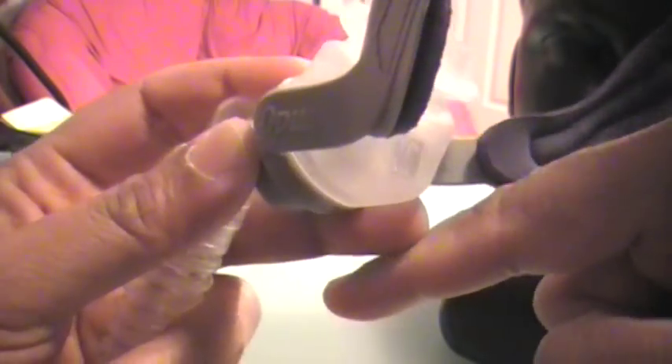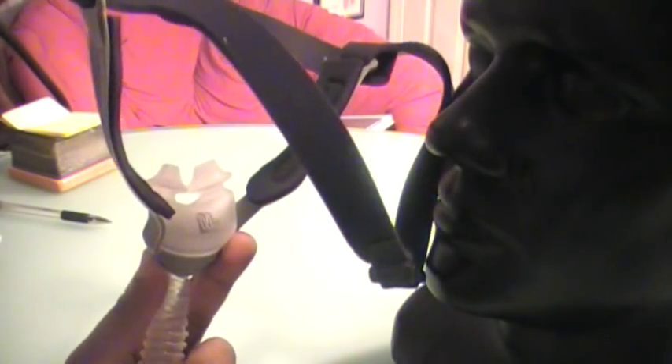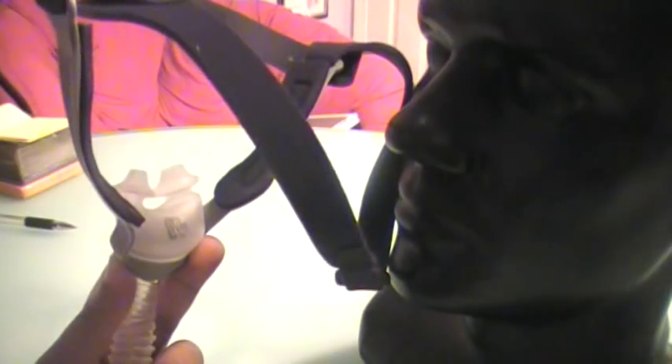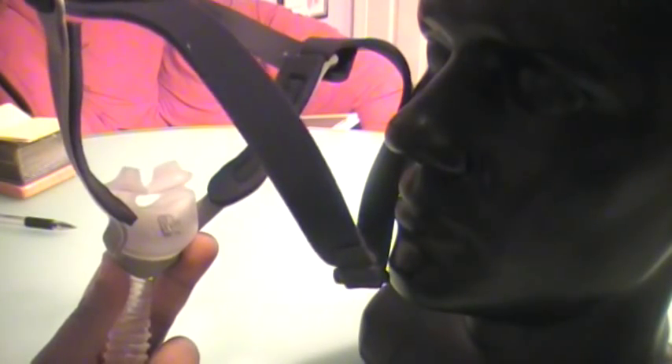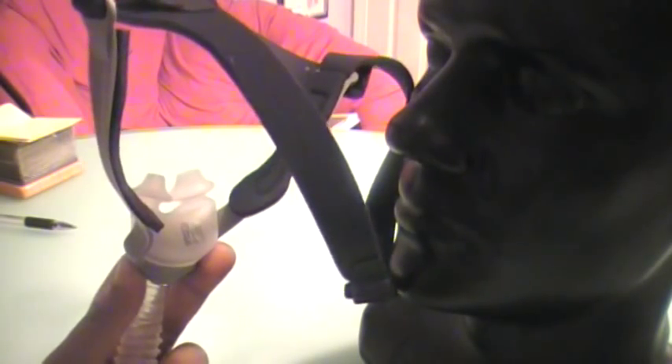Can you see there's almost a 45-degree angle where it's not touching the upper lip area? One of the biggest complaints of most nasal pillows is that they hit right above the upper lip. This one avoids that because of its angle. And if you have a mustache, this nasal pillow is absolutely perfect for that reason.